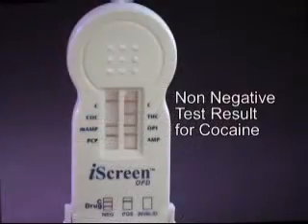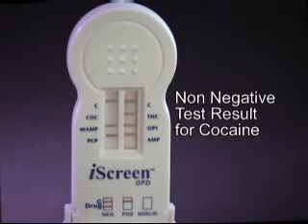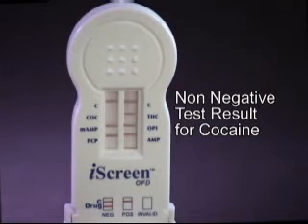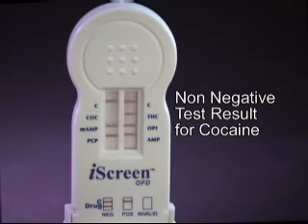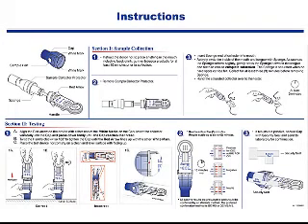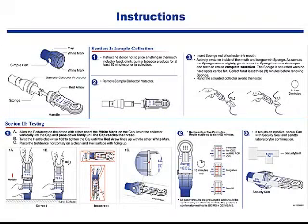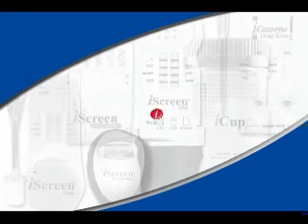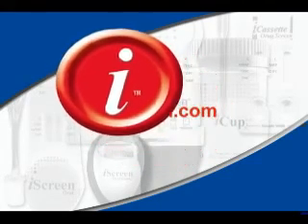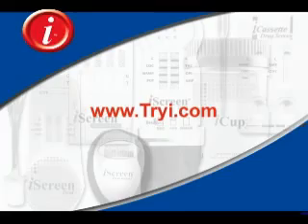The iScreen OFD has been designed to allow for the entire test device to be packaged and sent to the laboratory of your choosing for confirmation testing. It is important to remember that the iScreen OFD is only an initial screen, and all non-negative results should be confirmed by a laboratory. For reference, the iScreen OFD device comes with a step-by-step procedure card that details how to operate the device and interpret the results. For more information on the iScreen OFD or additional products, please visit our website and online training guides.